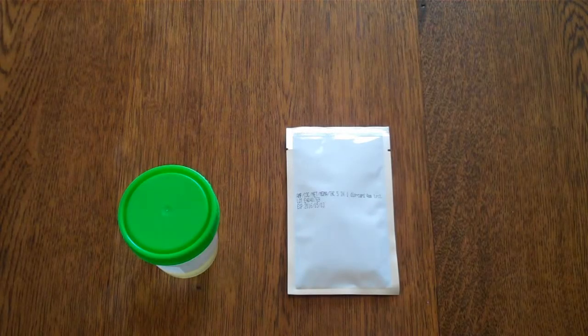Okay, in this video we're going to show you how to do a club drug test. Club drug is a term used to describe the common recreational drugs that are available in clubs and pubs and parties. This particular test will screen for speed, that's amphetamine, cocaine, methamphetamine, crystal ice, MDMA, ecstasy and cannabis. So it's a 5-panel test and you'll get individual results for each of those 5 commonly used recreational drugs.